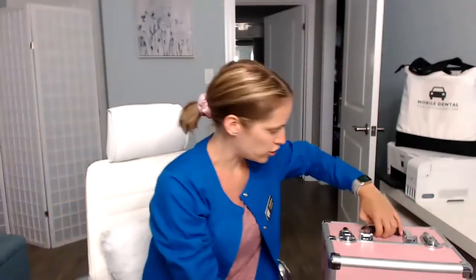Hi everybody, Andrea here. Thank you for your patience. I'm doing the video today of my new pink mobile cart. I love this color — how cool is this? My shirt actually matches, that was not intentional at all. I'm going to show you guys what I bring with me to my mobile dental hygiene appointments, and I'm going to move the webcam so you can see the actual size of it.